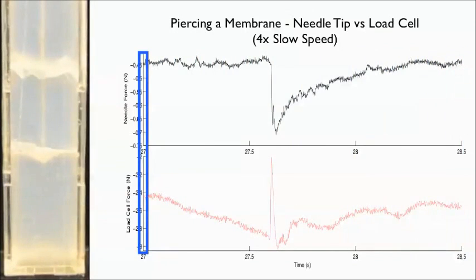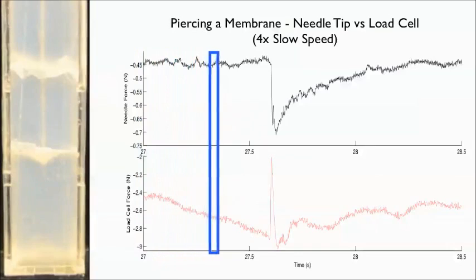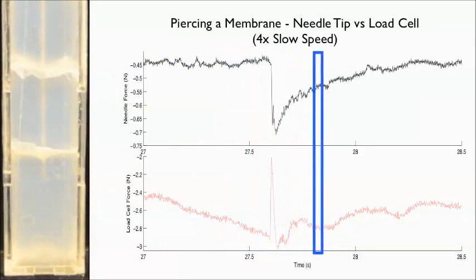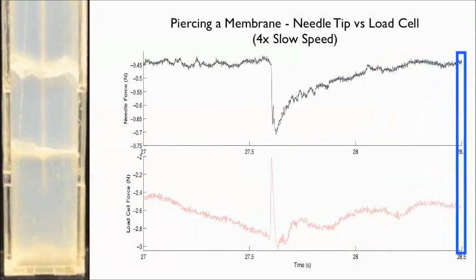As the needle punctures a tissue phantom with multiple membranes, the phases of tissue deformation can be seen and membrane puncture can be detected visually as well as audibly.